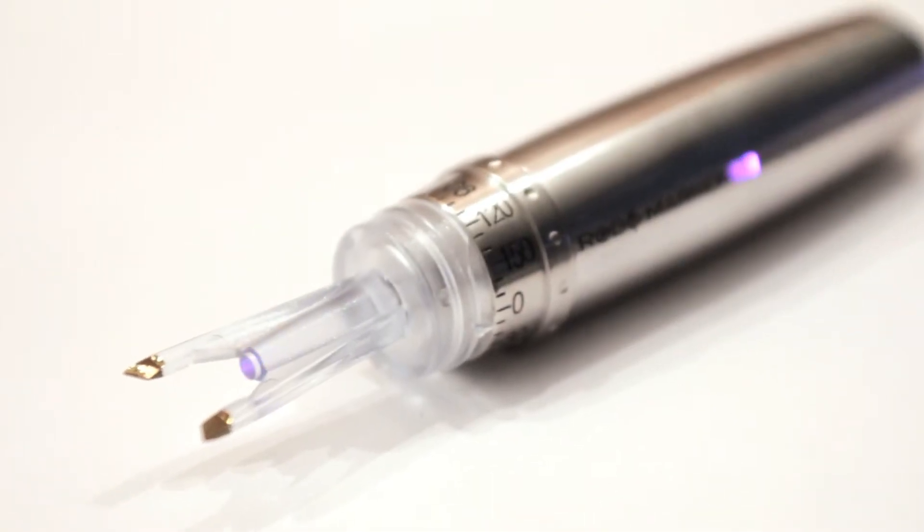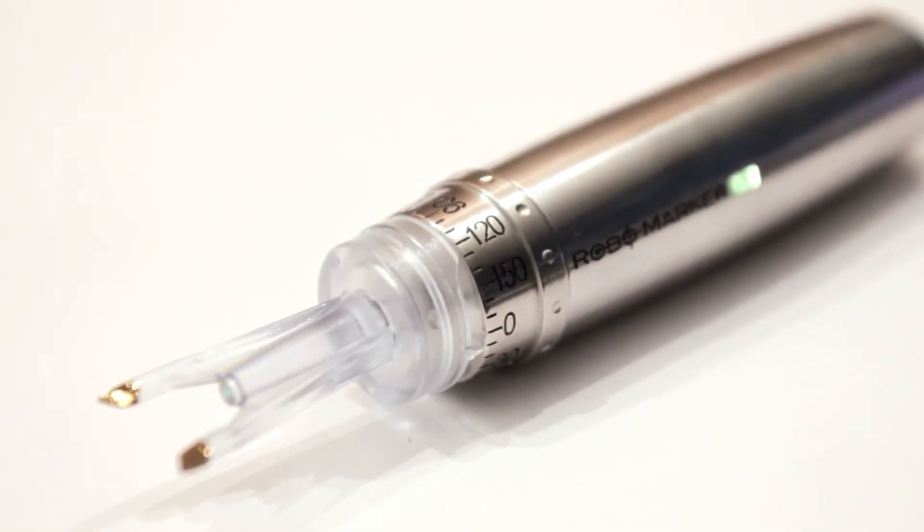And D is for disposable. We're the only system with a sterile pre-inked disposable tip with ink that can last up to two hours.